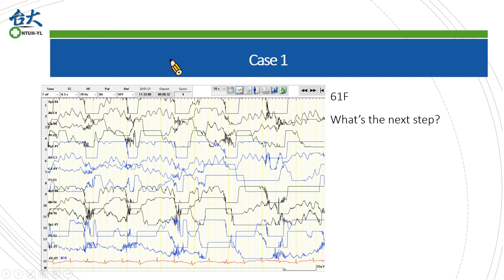Let's see this EEG. At first glance, what is your intuition? The EEG is such a mess — let me just page through to see if it will be better on the next page, right? This is not the case. I will show you how informative this EEG is. We may see many traces are overflowed. The voltage is so large that it cannot be shown on the screen, and the frequency of the overflow is very slow. Therefore, to eliminate this artifact, we should decrease the time constant or increase the threshold of the low-frequency filter.